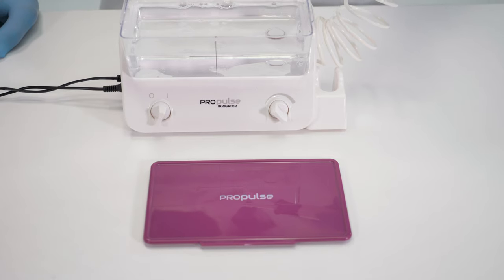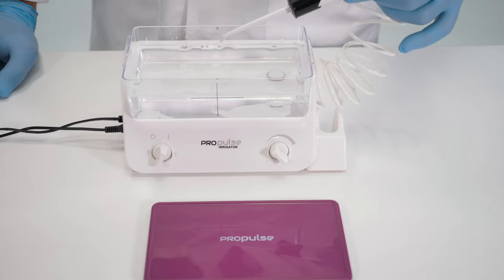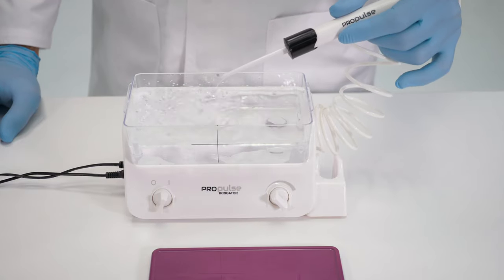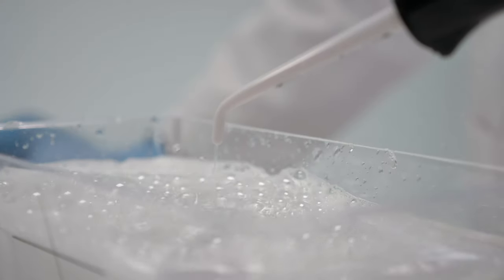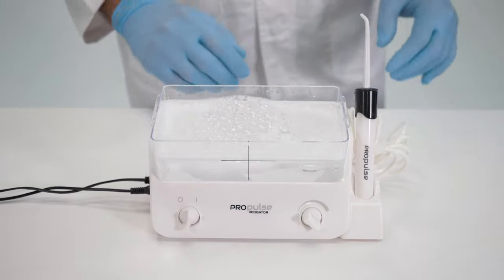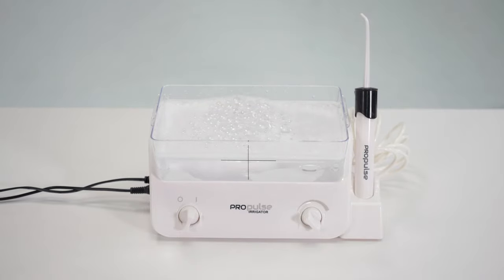Once the tablet has completely dissolved, run the solution through the tubing to the handle and all the way through the tip. The decontaminate solution is then left sitting in the machine for approximately 10 minutes.